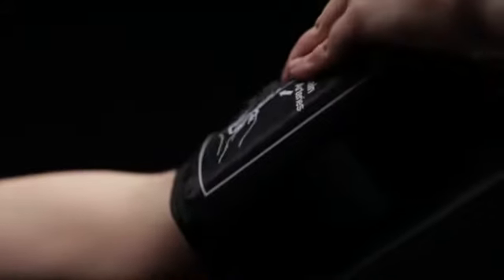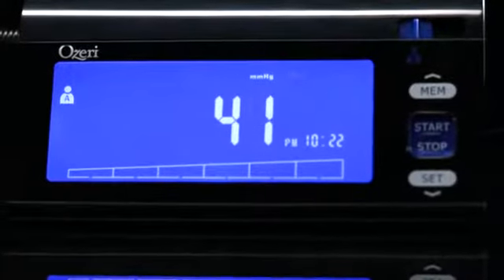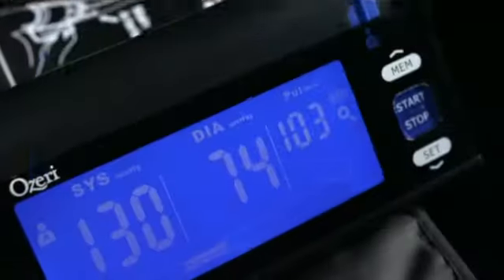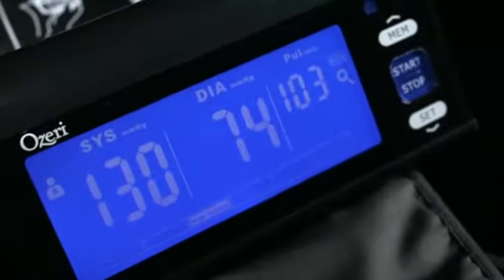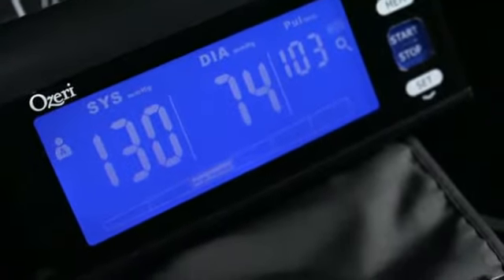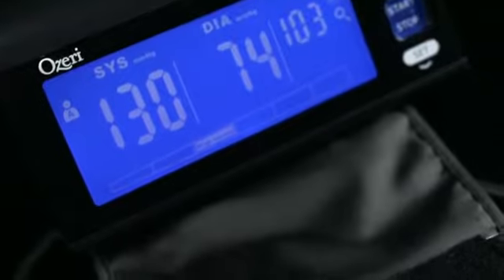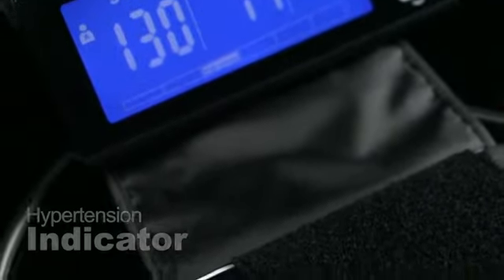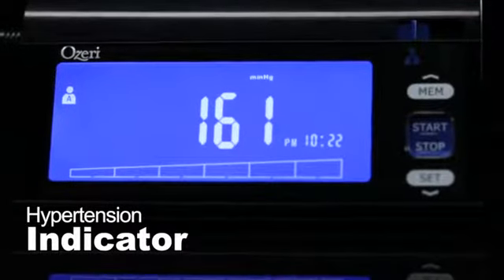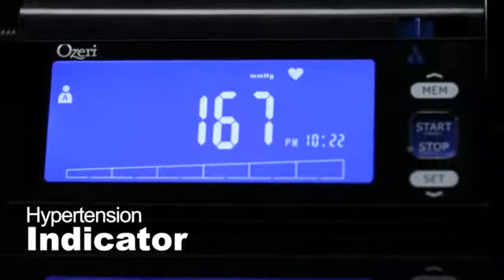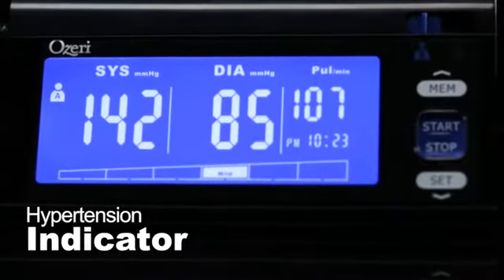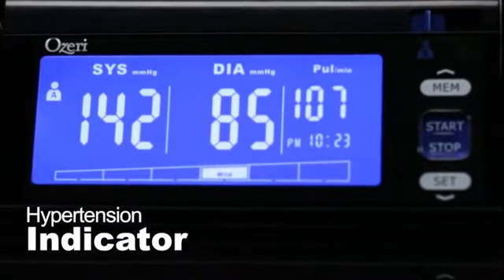Easy to use and easy to read, the BP3T is a two-user blood pressure monitor that utilizes an advanced one-step operation and automatically classifies each reading with an intelligent hypertension indicator.